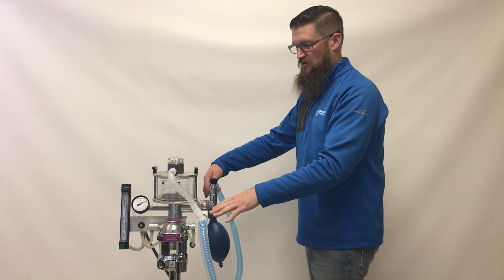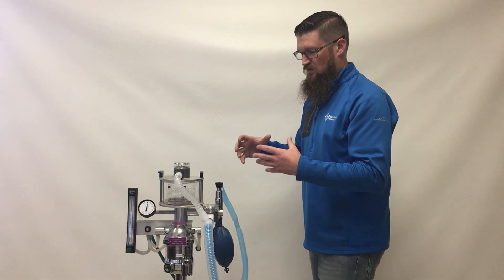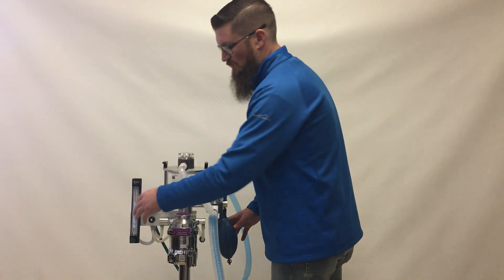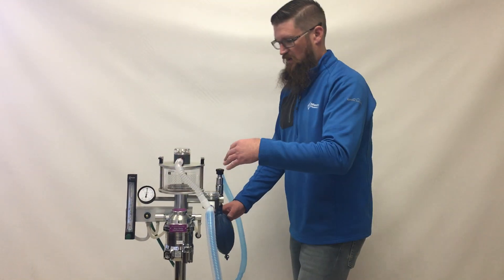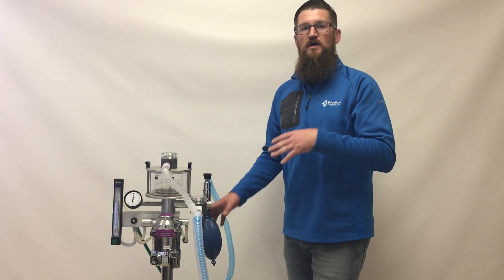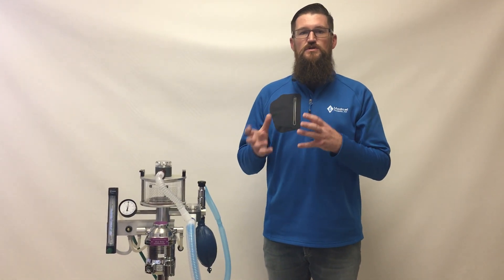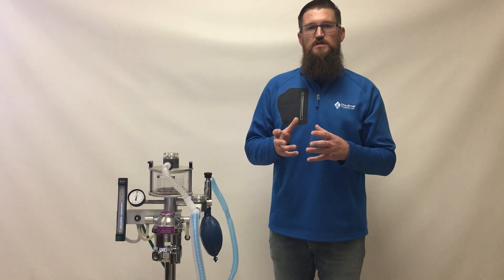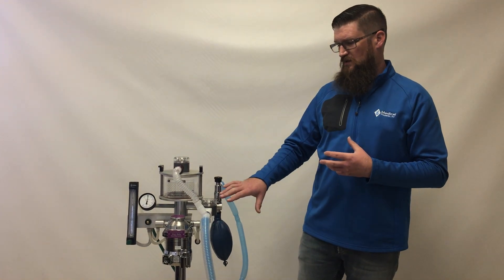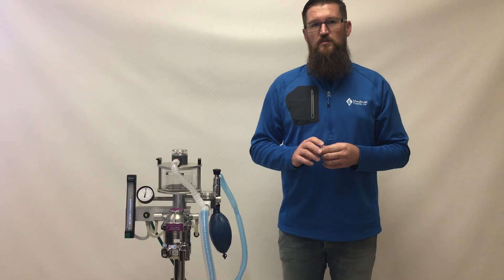The valve doesn't open enough to allow all of the gas to escape, so you're still maintaining pressure and able to bag the patient. You can supplement with a little extra oxygen flow to compensate for the small amount of gas escaping if you're bagging for a prolonged period. For just delivering a couple of breaths under general use, you shouldn't need to do that — it should operate normally. You'll hear a little bit of the valve opening, but function will remain.